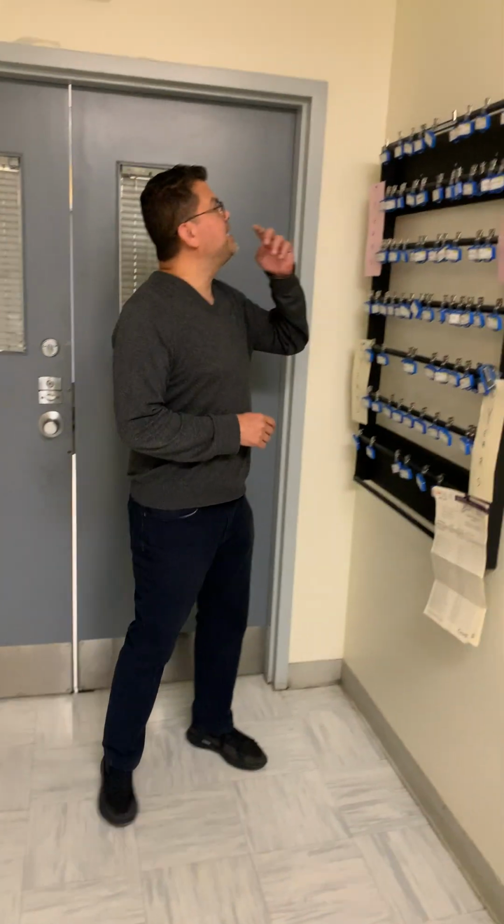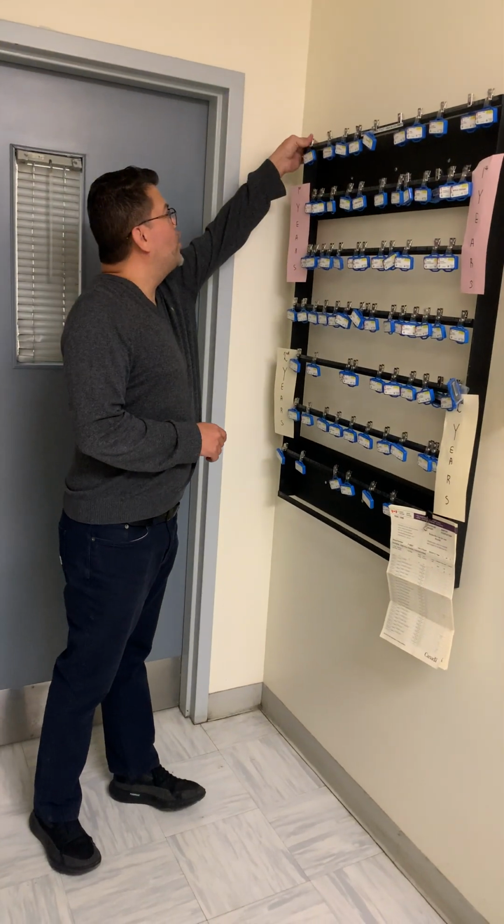I am going to show you the two certification exercises that you will be doing in a couple of weeks, okay? This is a demo that hopefully will help you prepare for it. First thing to do is to take your OSL and place it correctly where it's supposed to go on your body. Make sure that it's clipped securely so it does not fall off you.